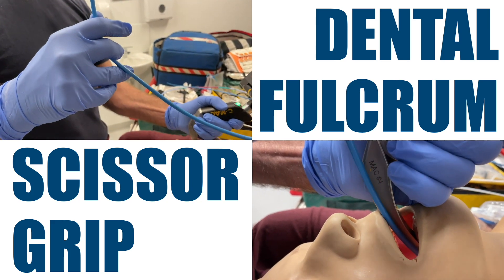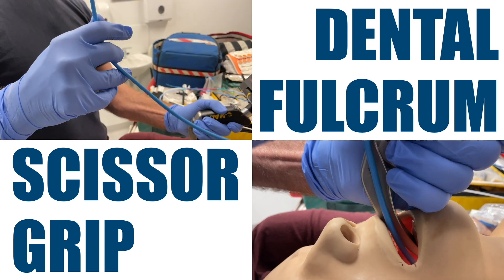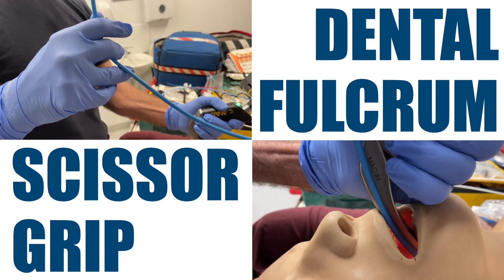In this video I'm going to show you two micro skills that can come in handy for anyone using a bougie with direct laryngoscopy or standard geometry video.